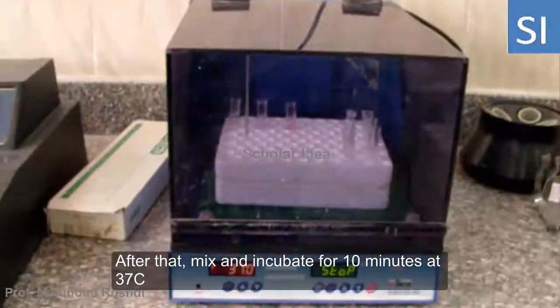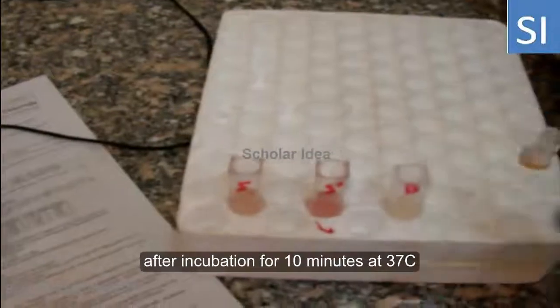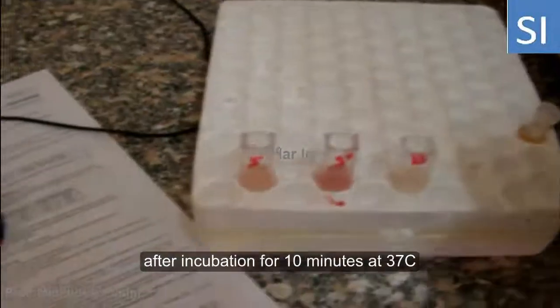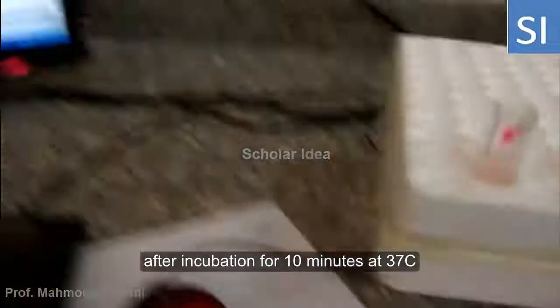After incubation for 10 minutes at 37 degrees centigrade, we proceed to the color measurement.